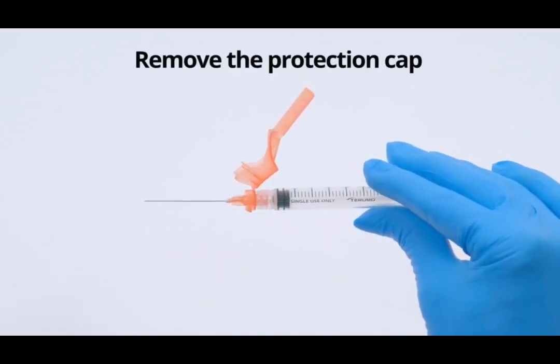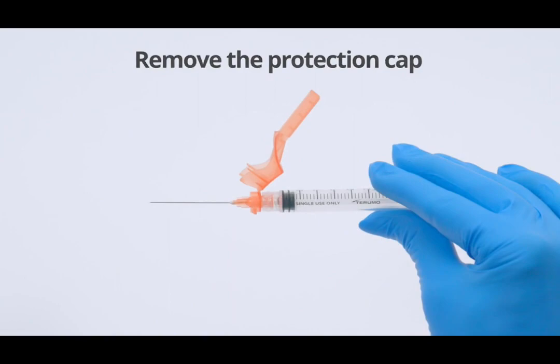Remove the protection cap carefully to avoid damaging the needle. Perform injection procedure according to established techniques.